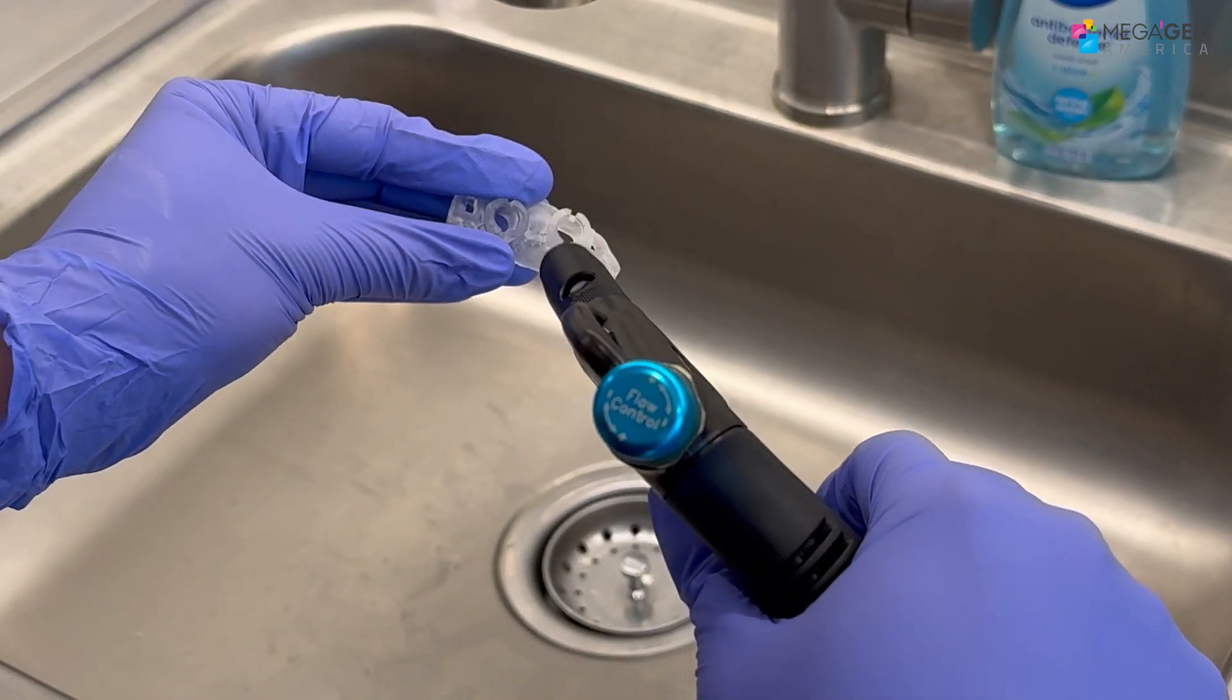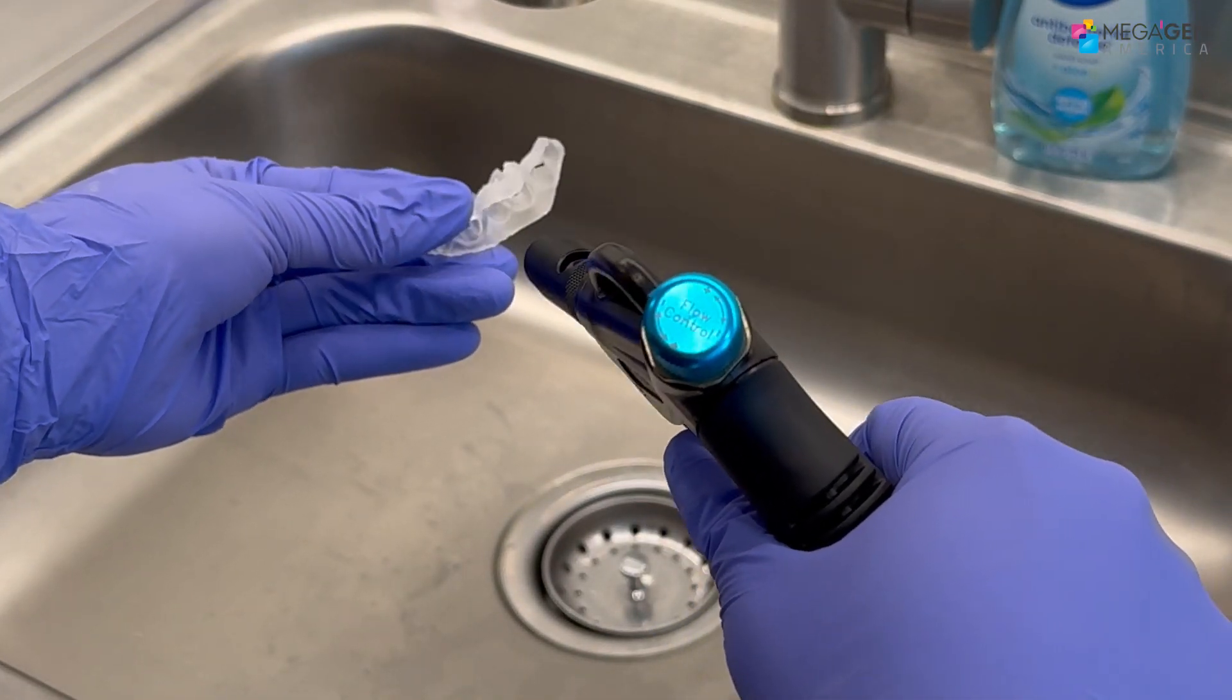If you did not dry the model before curing, then you may see a powdery layer on your model after curing.